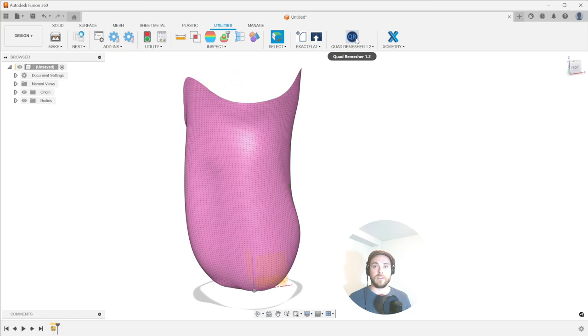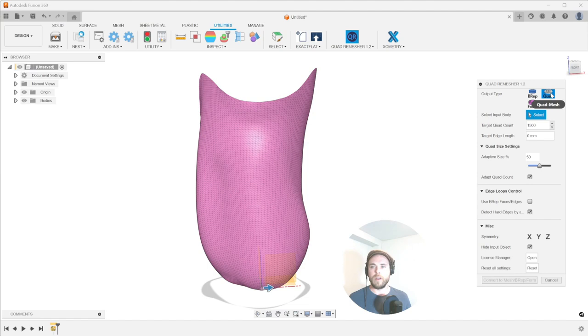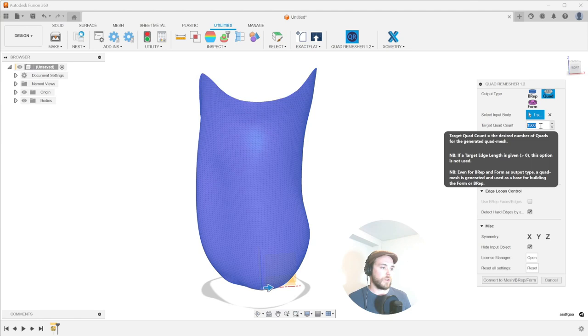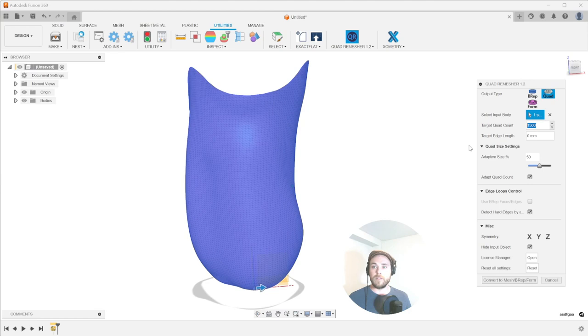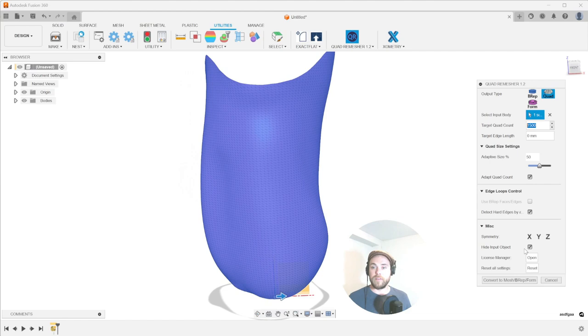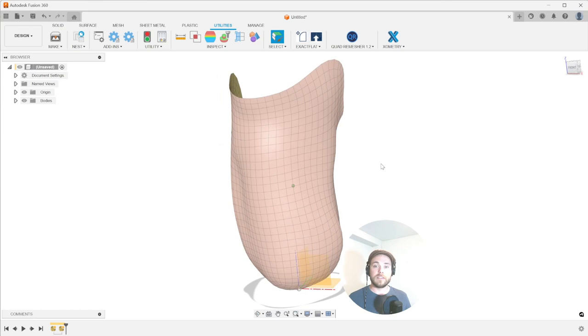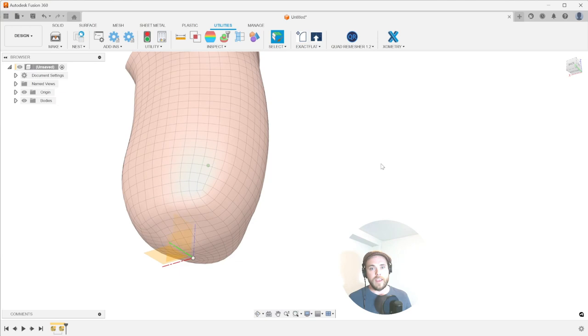We are now ready to convert this to a quad mesh in the utilities tab using the quad remesher. The quad remesher, we got to make sure quad mesh is turned on. We're going to select our body and we're going to have a target count. I would say between 1200 and 2000 points is a good number. The higher numbers for more detail, the lower numbers for a smoother result. So I'm going to start off with 1500 here. And I think that's the only thing you need to play with. You can play with some of these other things, but fundamentally that is all you need is to hit a quad count and hit convert mesh. And look at that. It's faster and better than ZBrush and you get your quads.